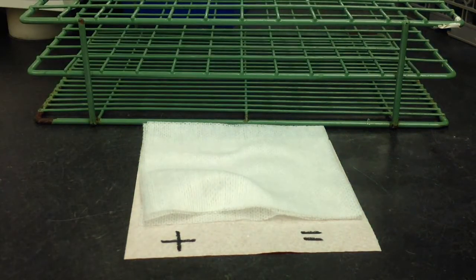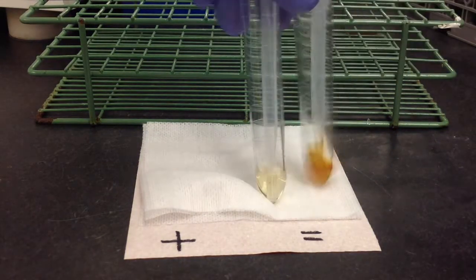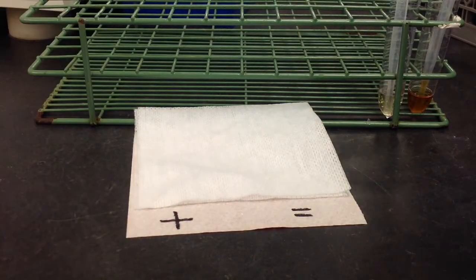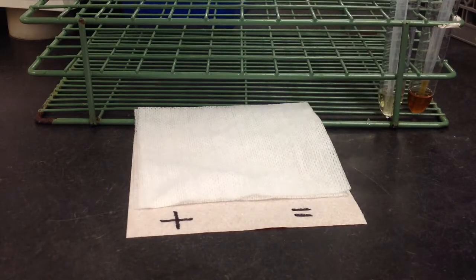You're going to need the tablets themselves, the absorbent mats, and your specimens. Here I have a positive and negative control. You're also going to need some deionized water.